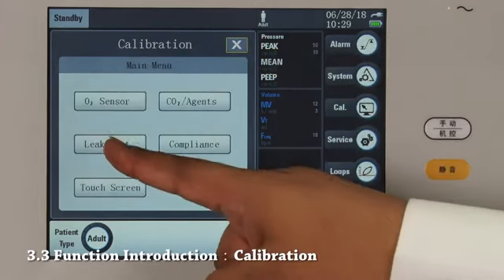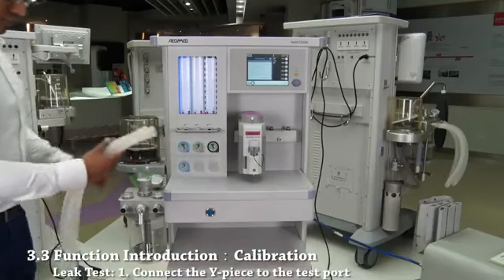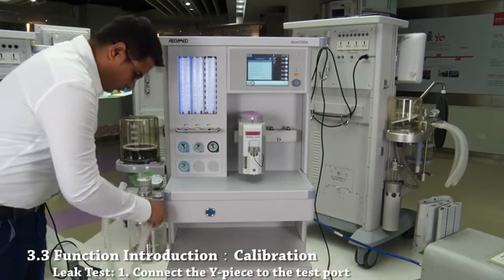Press here to perform leak test. Please follow the instructions on the screen. First, connect the Y-piece to the test port.